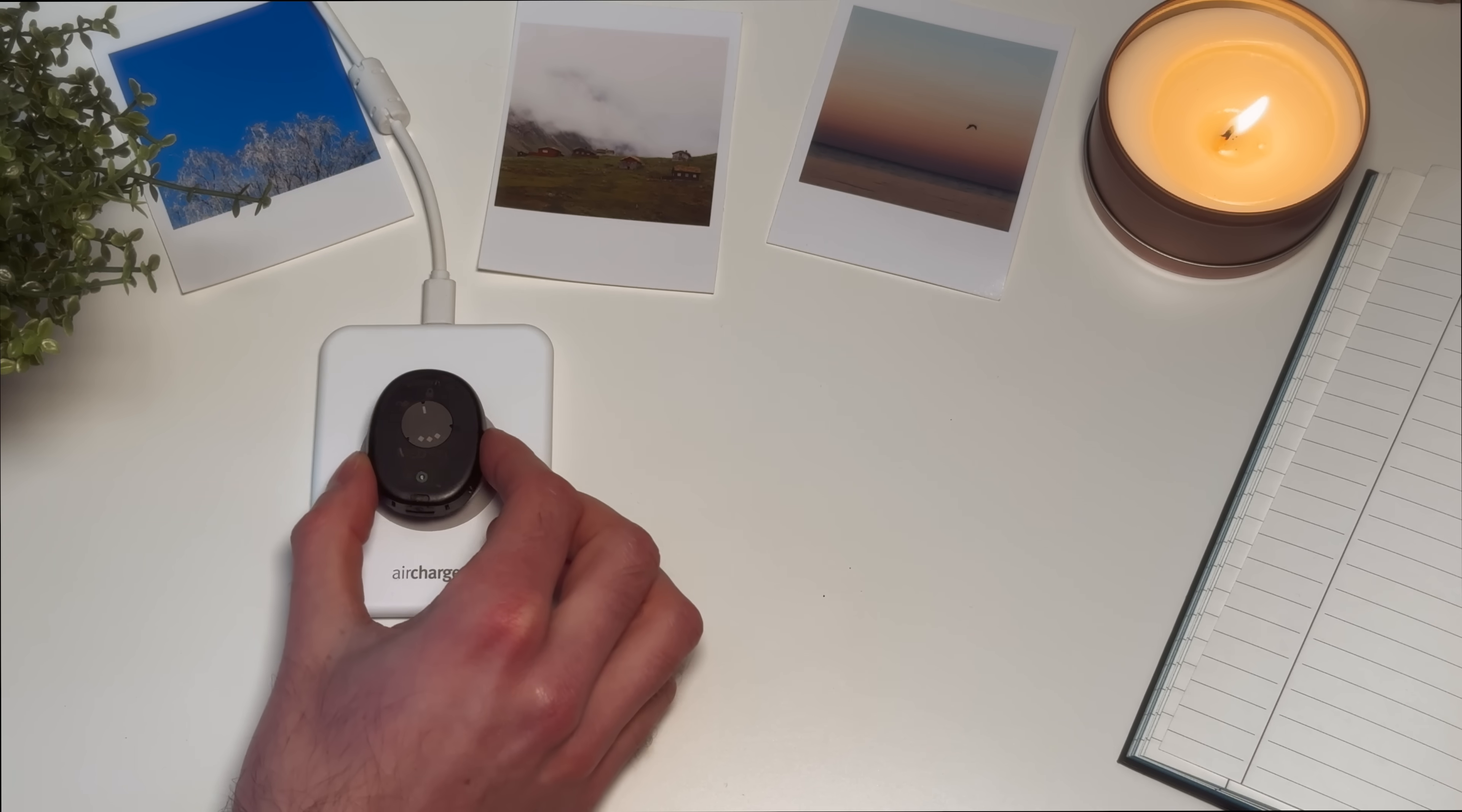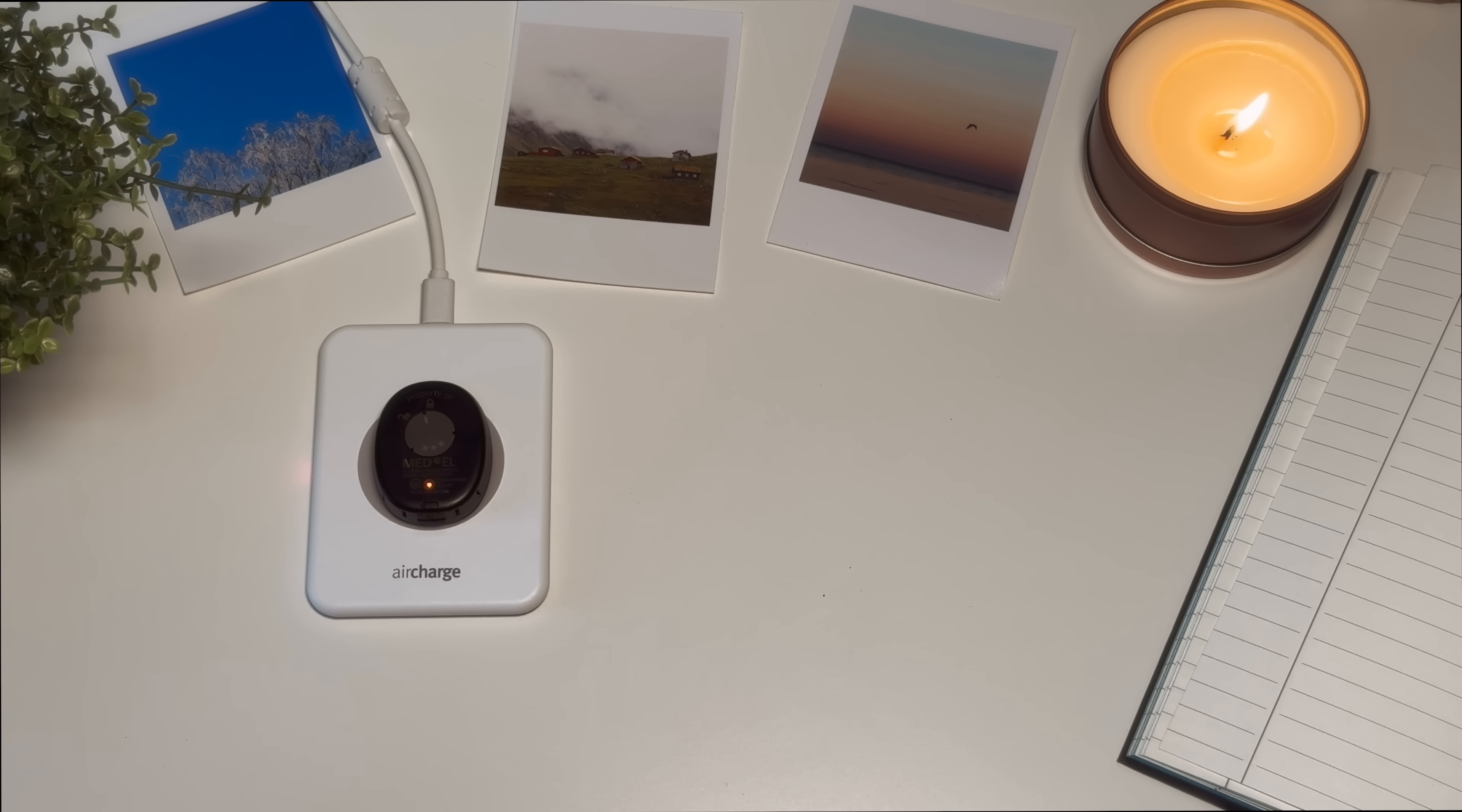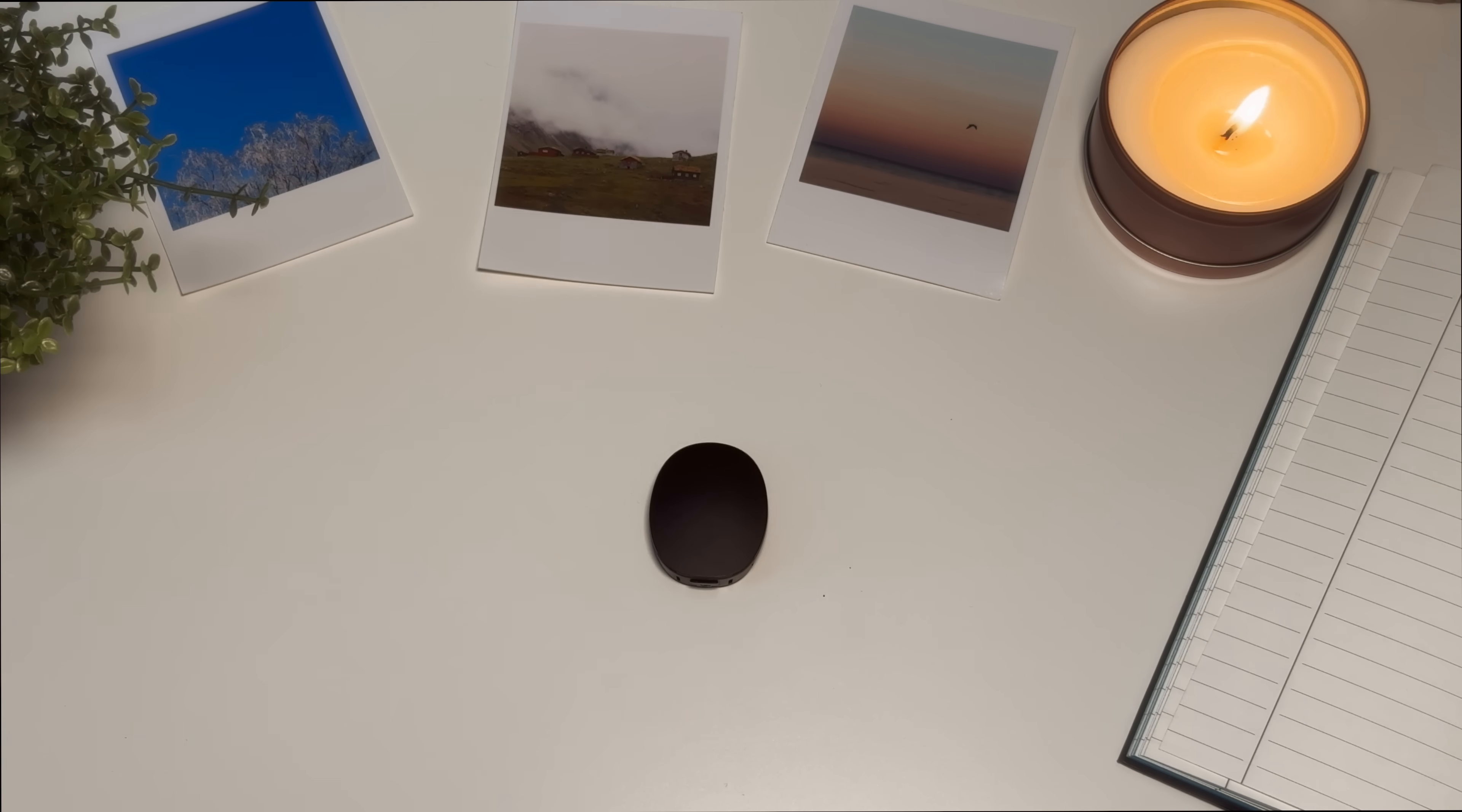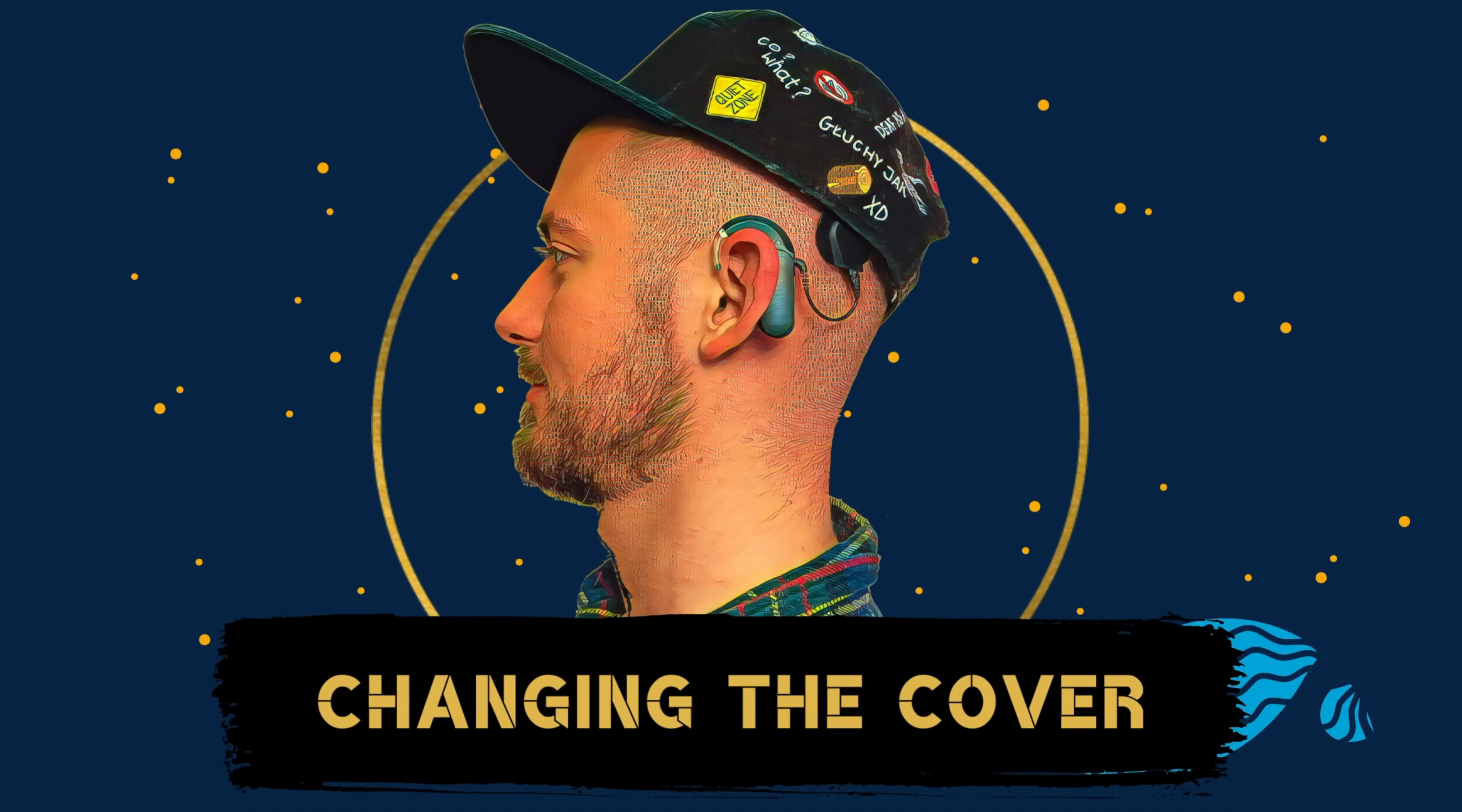RONDO 3 will automatically switch OFF when placed on the wireless charger. The orange charging indicator light on the RONDO 3 will illuminate while charging. When the lights go OFF, RONDO 3 is fully charged. This should take 2.5 to 4 hours. Charging RONDO 3 overnight for a full day of hearing is recommended. As you can see, charging RONDO 3 is incredibly simple.